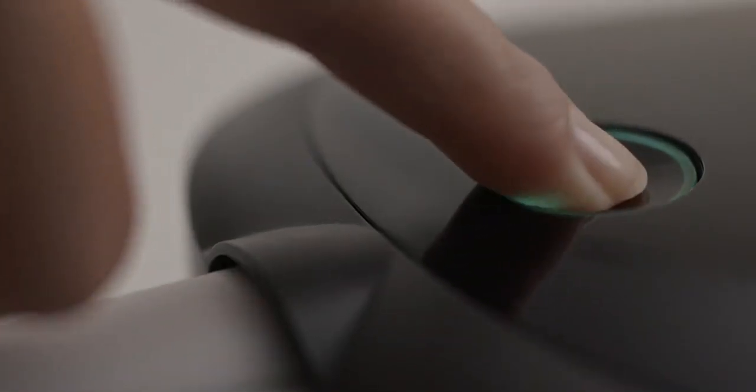To stop airflow, simply press the therapy button at any time. To stop device power, unplug the cord from the electrical outlet or pull on the designated tab of the connector on the bottom of the device.